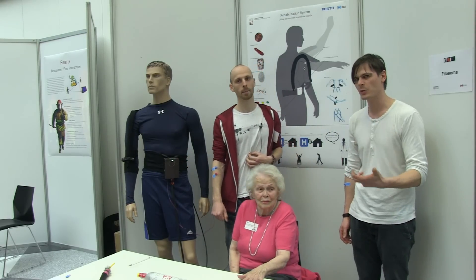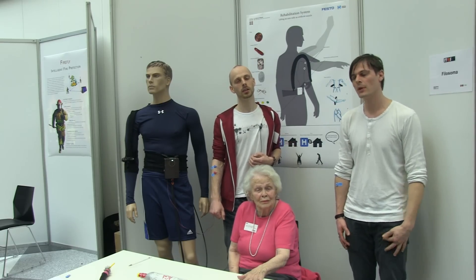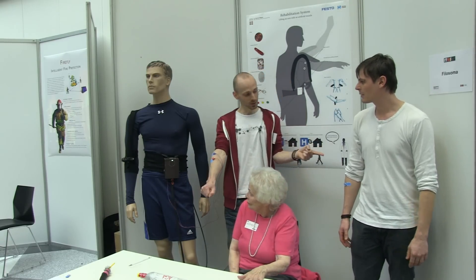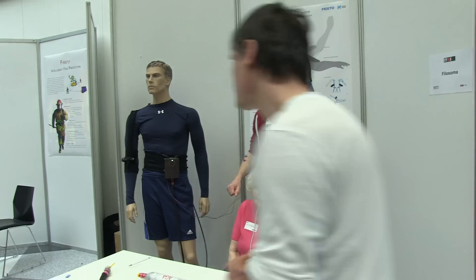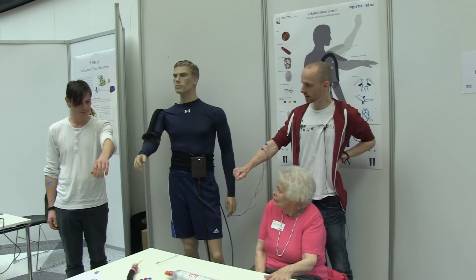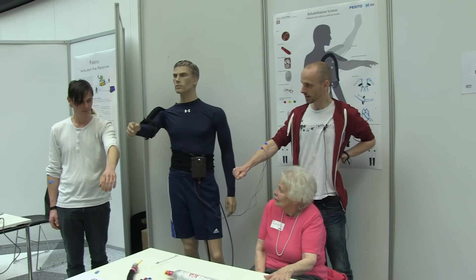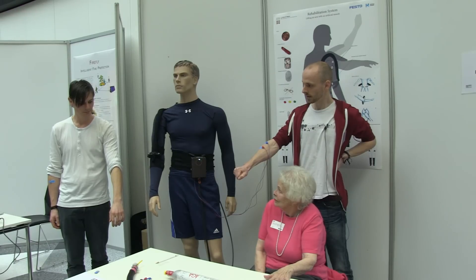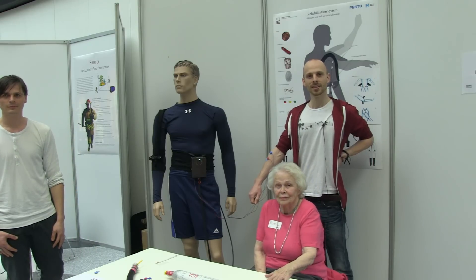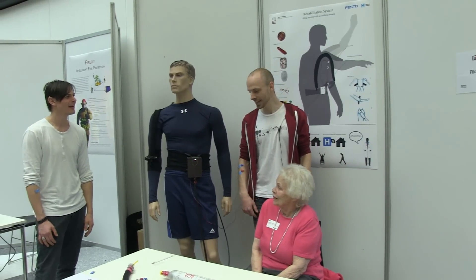These patients are not interested in very fast movements, so the delay is not a problem. Yeah, I'm not so interested in the speed — I'm interested in the control. Control you have. So if you move your arm I have to look at this to see where it goes. Pretty good. Can you scratch? Well, that's the next level.